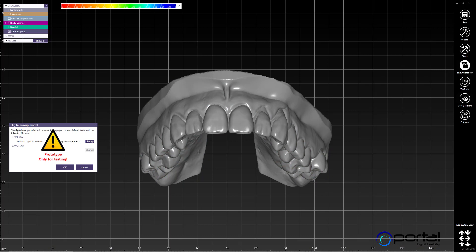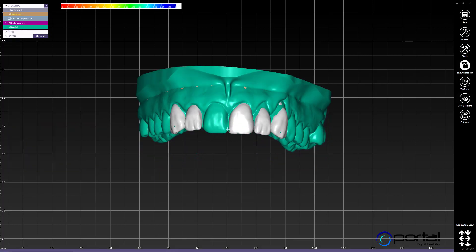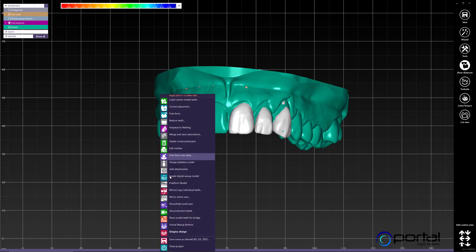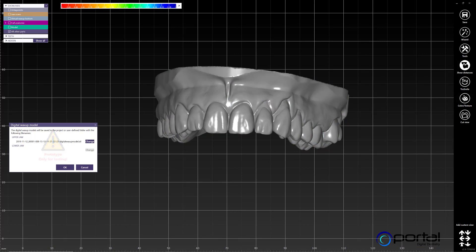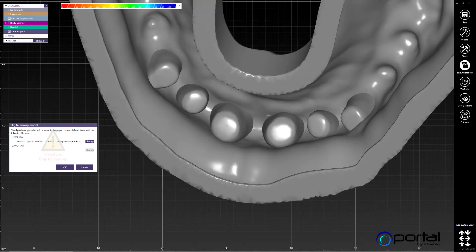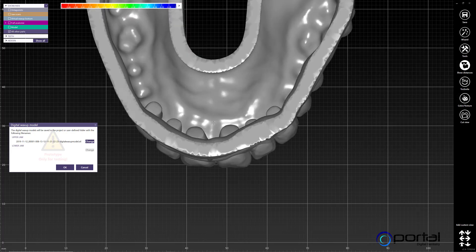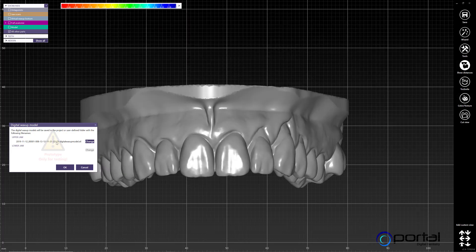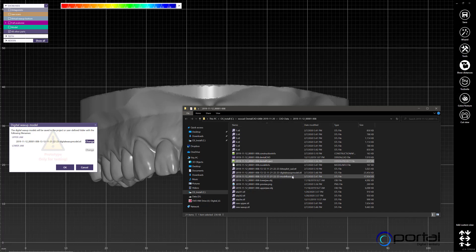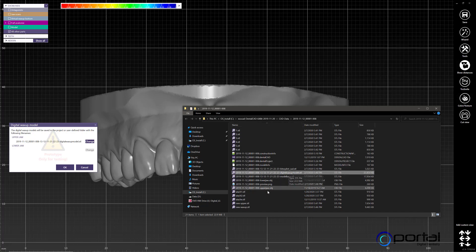Once the software generates the model, in expert mode we have the option: Create Digital Wax Up Model. Keep in mind it is a prototype — this is still in testing. ExoCAD does not guarantee this tool works. You click OK and the software will generate a model. The only problem is the software is not getting rid of certain elements — if you don't mind printing with those in place, that's fine. It generates a new file into your folder, which is the model base with the digital wax up model. So here's what the software created versus what I created manually, and then you can utilize those STLs to do the rest.